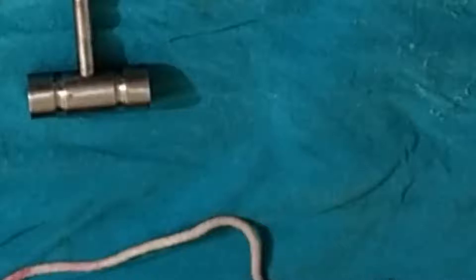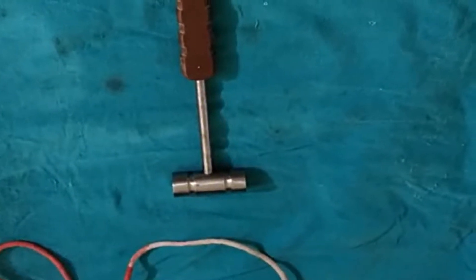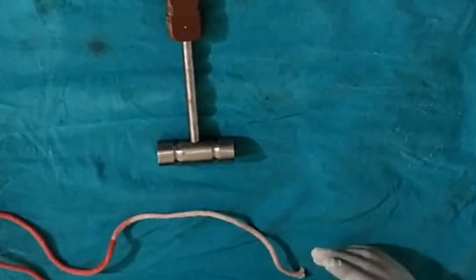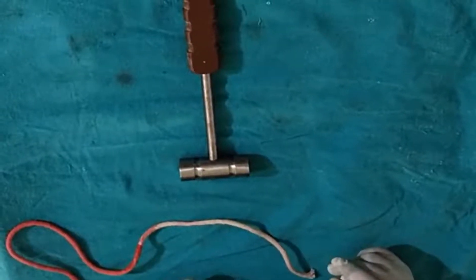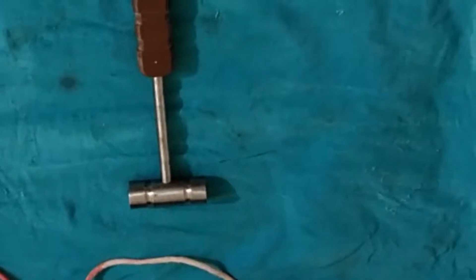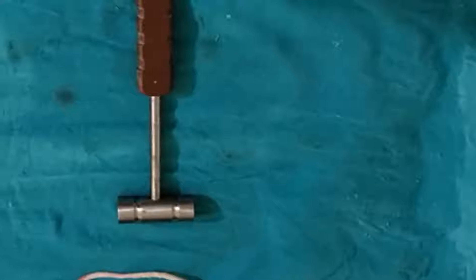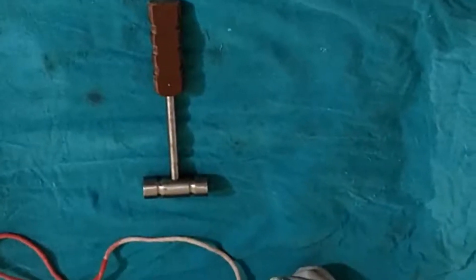There are basically two types of techniques for tying a knot: one is the hand technique and the other is the instrument technique. In the hand technique, it is further divided into two sub-types: one is the one-hand technique and the second one is the double-hand technique.